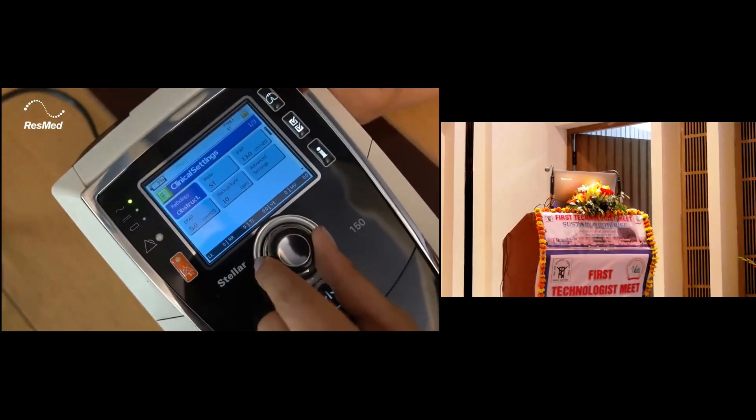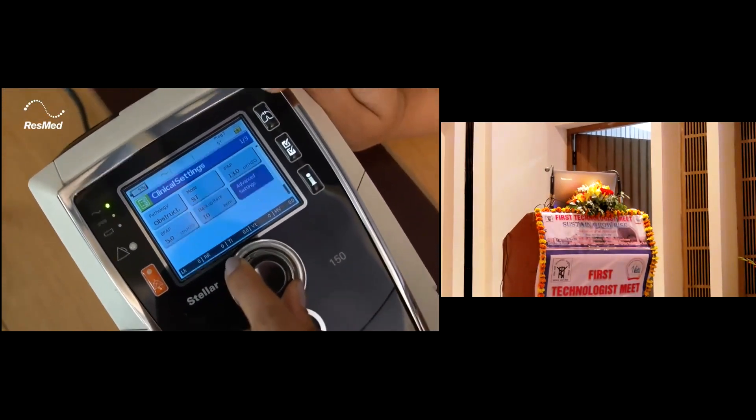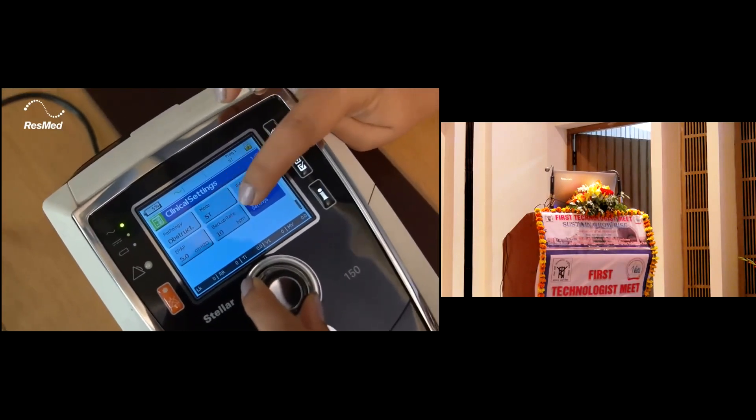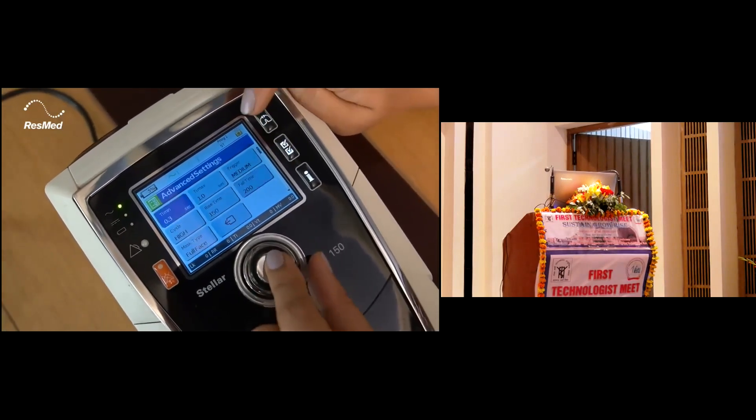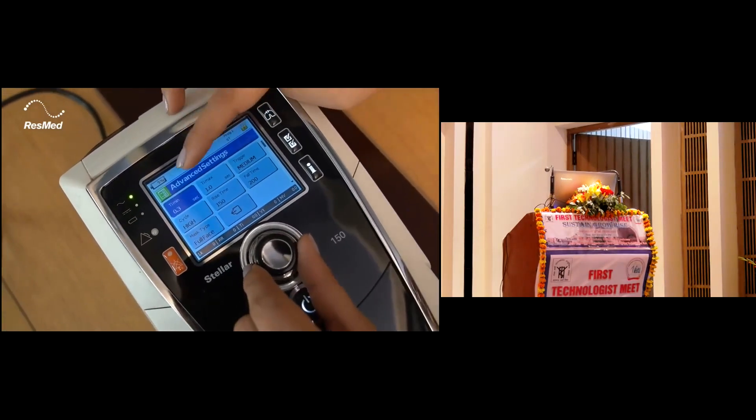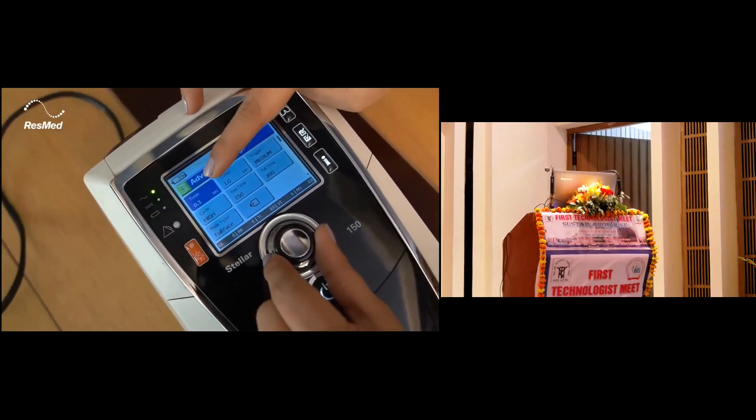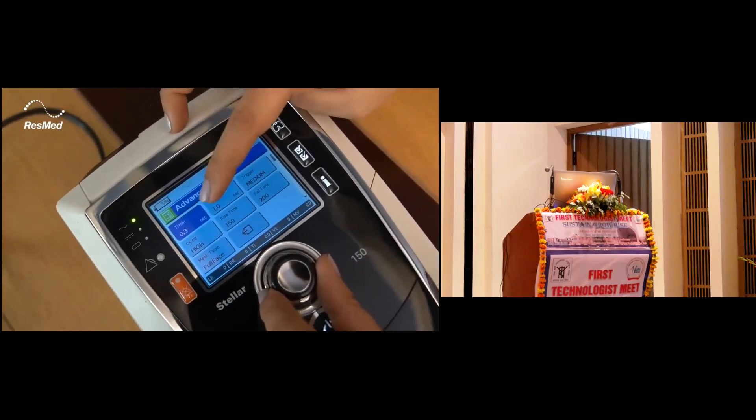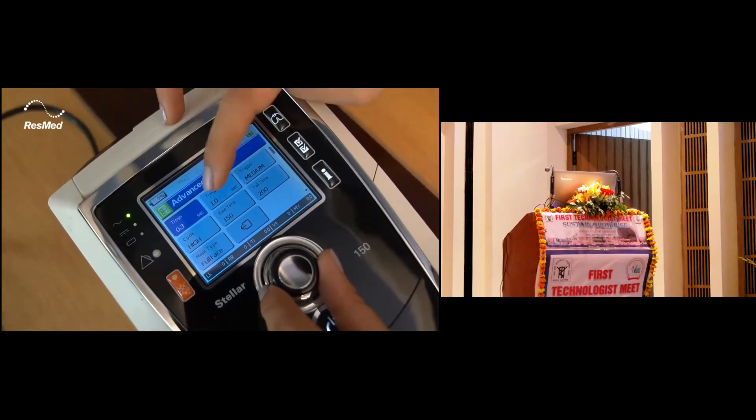In the settings we have the advanced settings. We have obviously the IPAP, EPAP, and backup rate. We can go into the advanced settings wherein you can fine-tune the settings: TI min, TI max, the trigger, the cycle, the rise time, fall time, and the mask type.